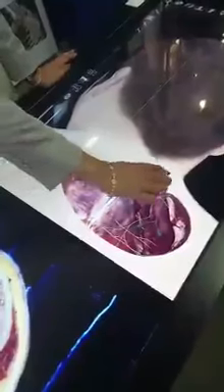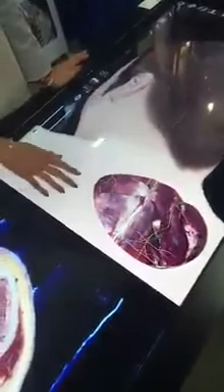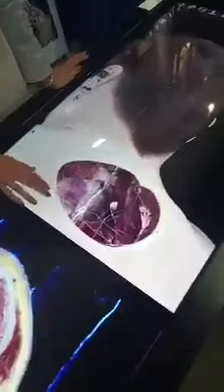If you don't want to look at the anatomy as a whole, you can also see regional anatomy. In this case, I have the female head and neck. To mimic some things you find in surgery, you can also do natural cuts — here I have an incision made and you can see the relationship between the skin, the fat, and other structures.